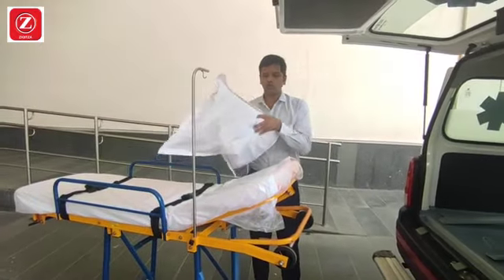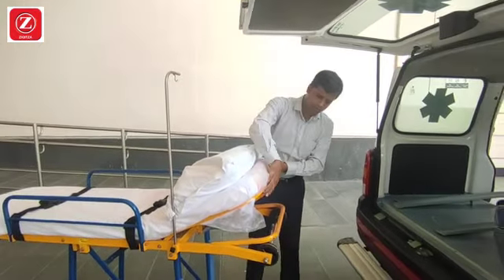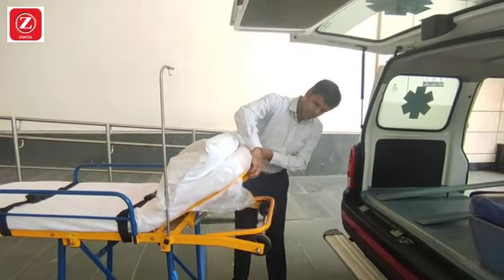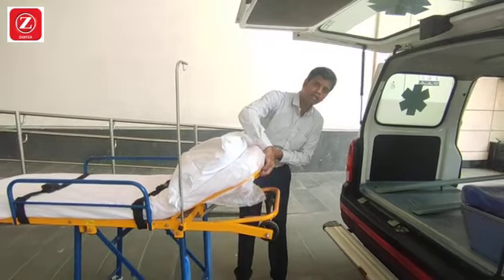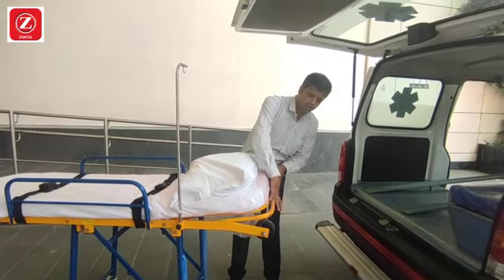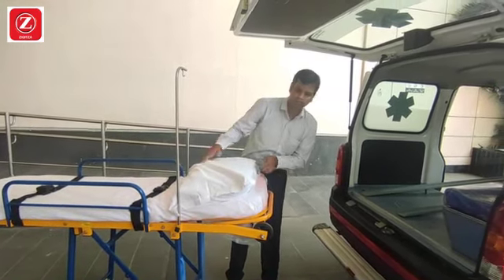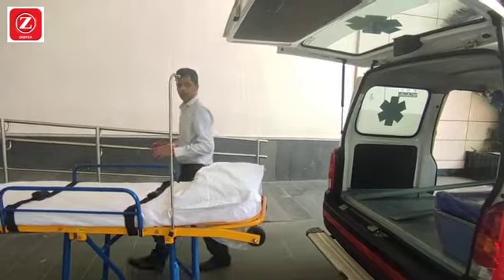At multi-level, you can lock it from the side railing. This is done for the patient's comfort. This is the back support. It's the back step.